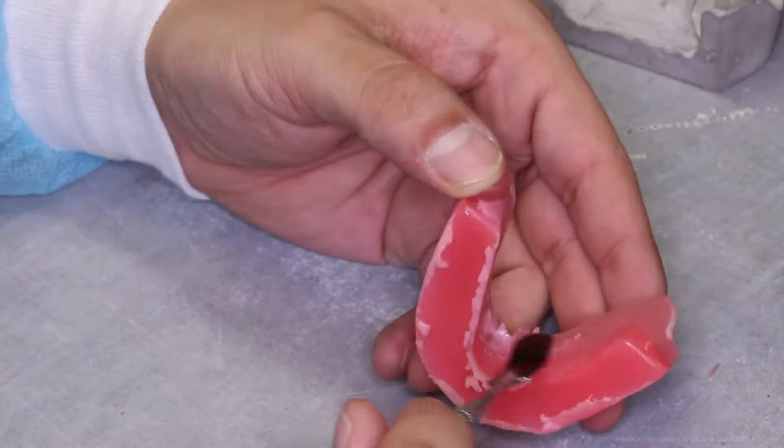It is important to pay attention to proper lingual contours, especially for the mandibular arch. The tongue space needs to be accurate for the clinician to properly evaluate the rims. Make sure to achieve proper widths — as seen in the video, the anterior is significantly thinner than the posterior, reading about 8 millimeters in the posterior and about 6 millimeters in the anterior. A tip to achieving a high shine is using soft packaging foam on a mandrel with a handpiece.